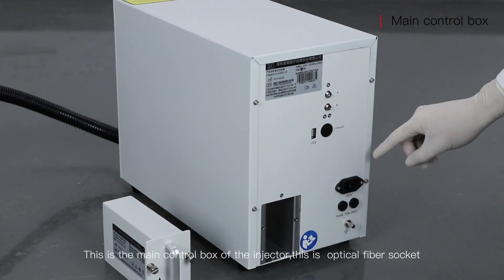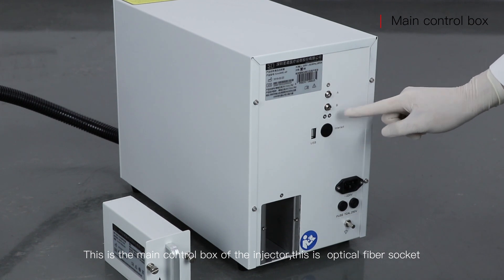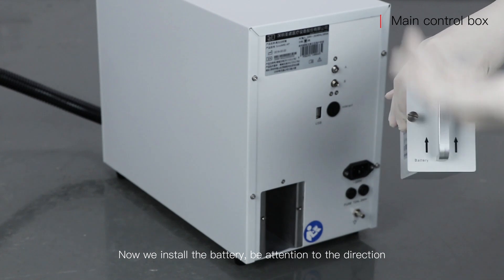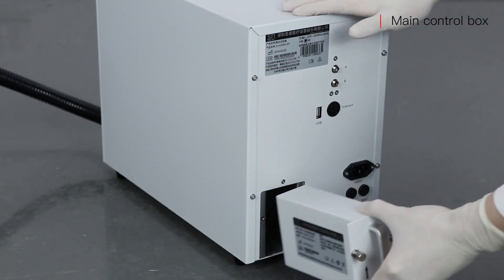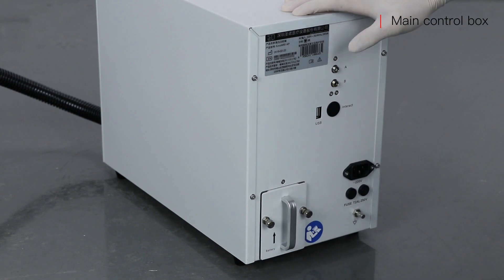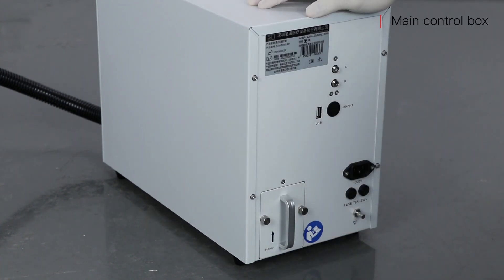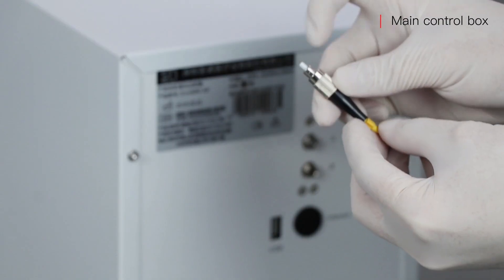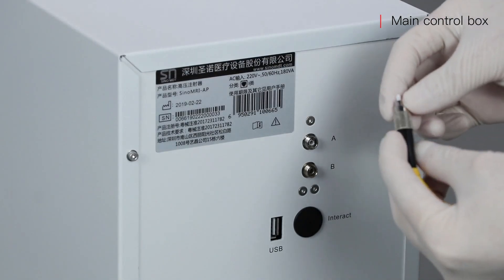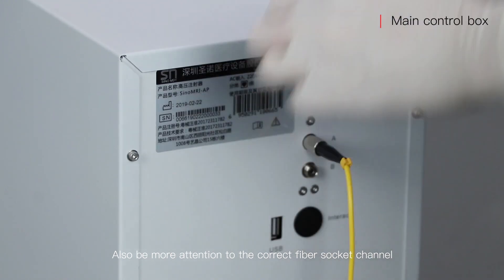This is the main control box of the injector, and this is the optical fiber socket. Now we install the battery — pay attention to the direction. Fix the screws. Also pay more attention to the correct fiber socket channel.